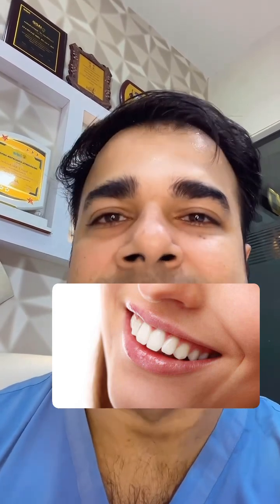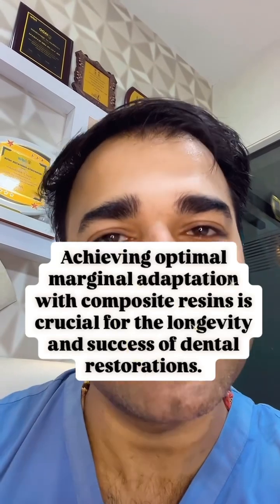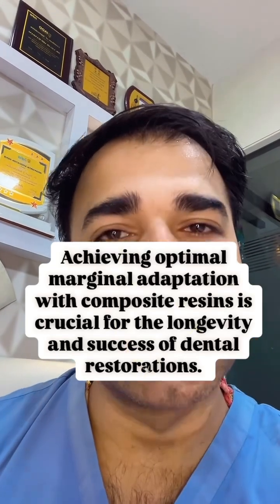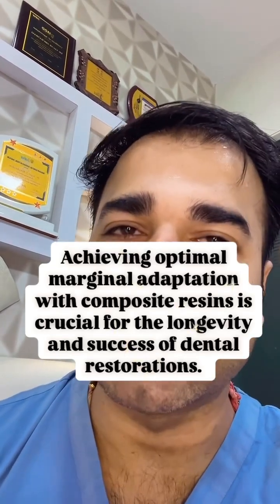By integrating these techniques and considerations into clinical practice, dental professionals can enhance the marginal adaptation of composite restorations. Remember, achieving optimum marginal adaptation with composite resins is crucial for the longevity and success of dental restorations.